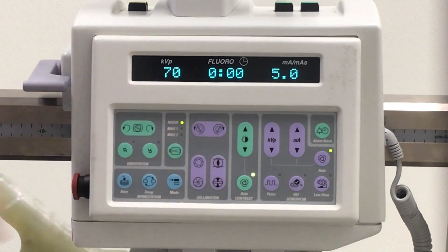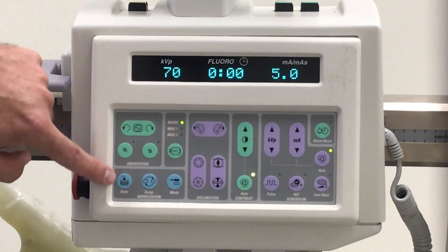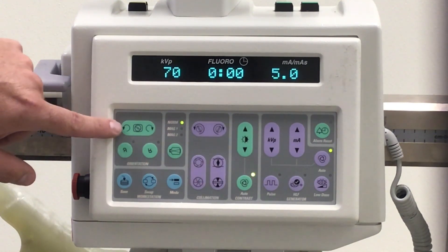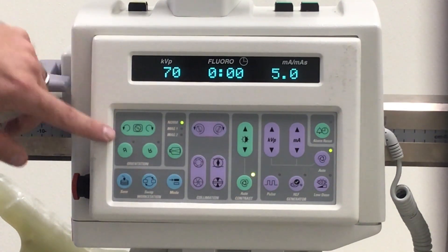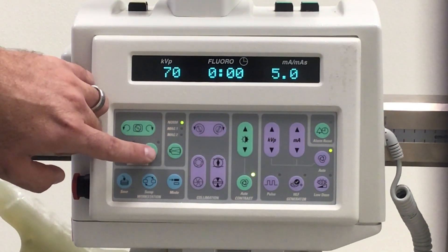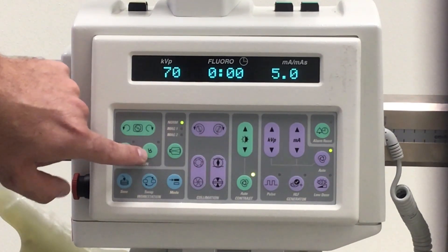On the actual controls you'll notice that everything is sectioned off and conveniently labeled. This button here is our image rotation — a digital one-degree rotation that rotates the image on the monitor. These buttons are your orientation buttons to properly get the anatomy in the orientation the doctor wants. You have a mirrored image and a reverse image.